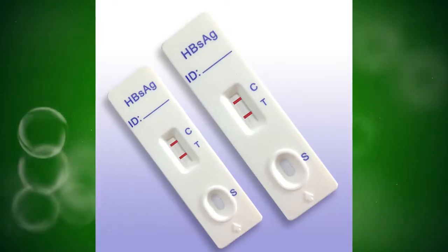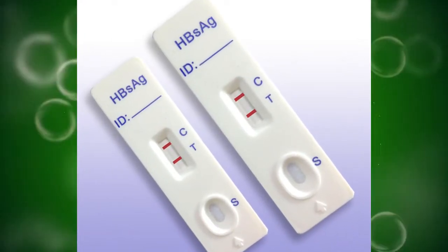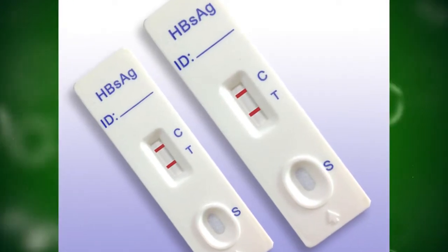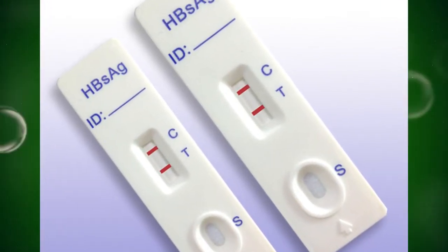Positive results: if we can see both the control line and the test line, we can mark the test as positive. In this case, the test line does not need to be very dark in color.